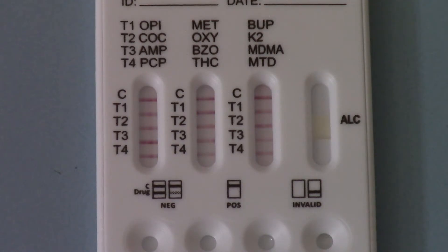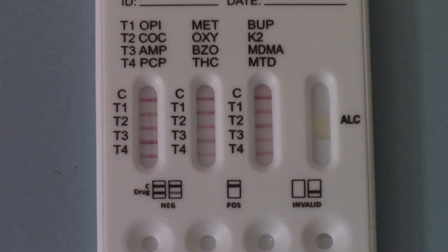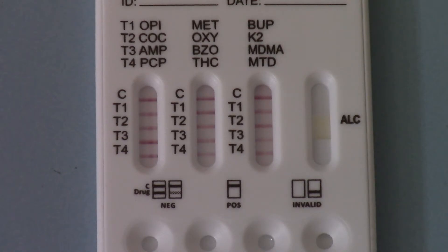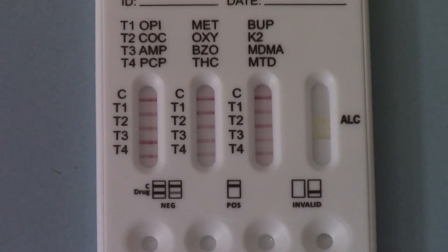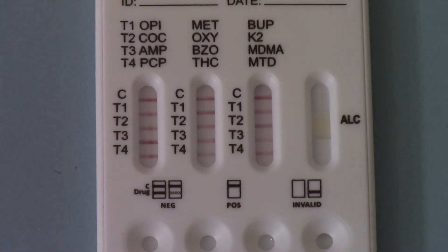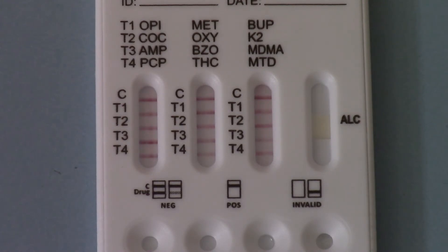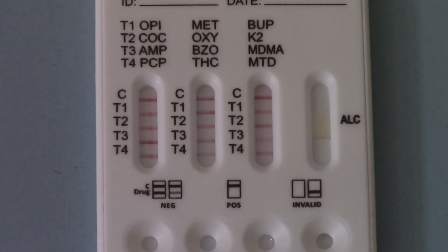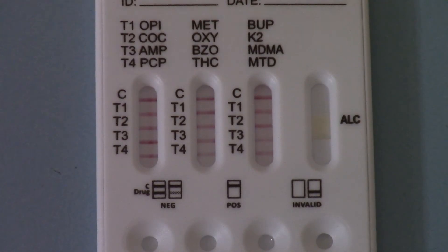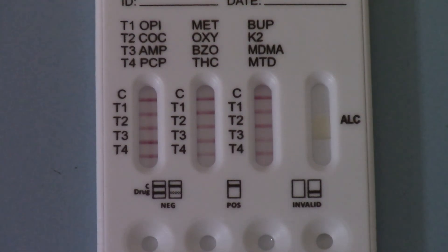So that is the AllTest DSD8135 — a very nice, easy, simple procedure to follow. You can clearly see what saliva you've collected with this test. You've also got a retained sample of the saliva should you need to do further testing on it if there are any queries.